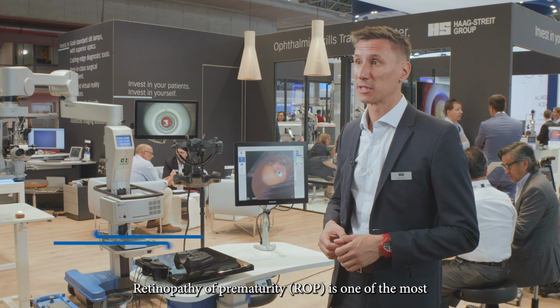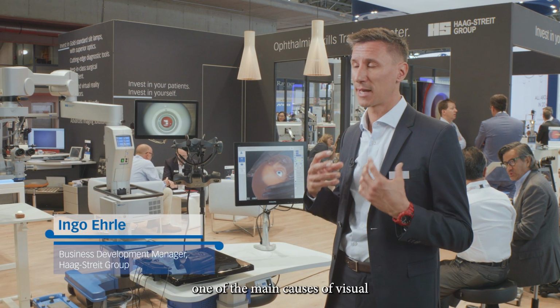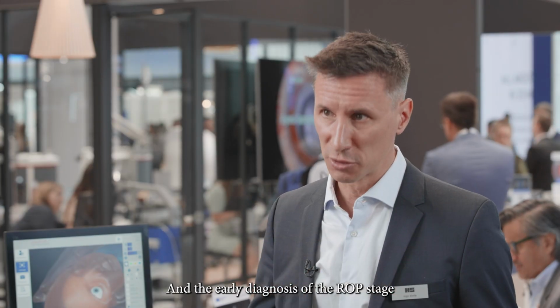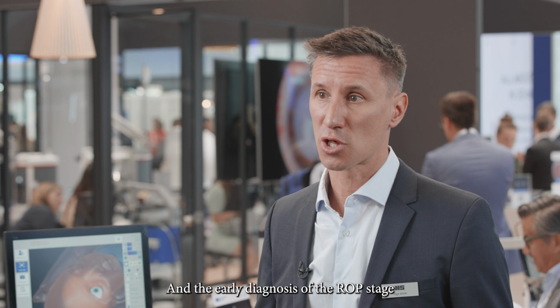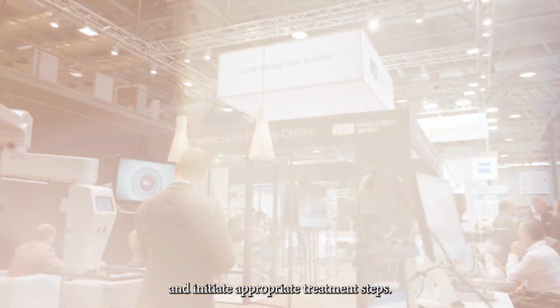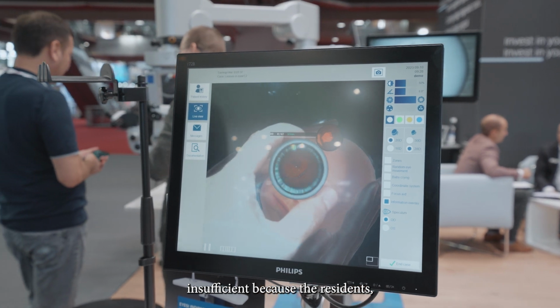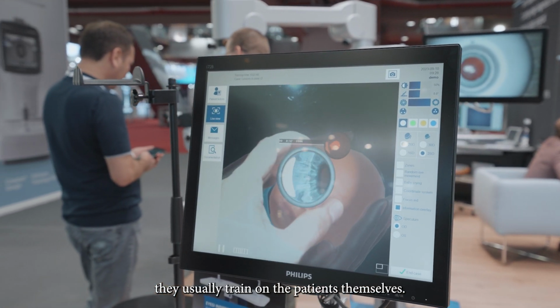Retinopathy of prematurity is one of the main causes of visual impairment in premature infants. An early diagnosis of the ROP stage and the progress of the disease is essential to draw the right conclusions and initiate appropriate treatment steps. Today, the training possibilities are usually insufficient because the residents usually train on the patients themselves.